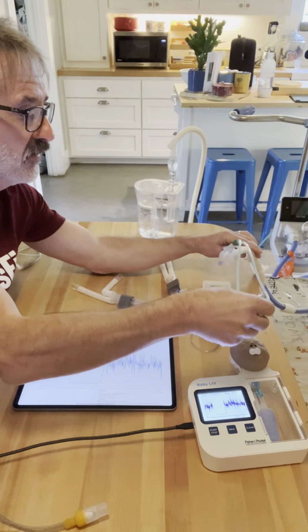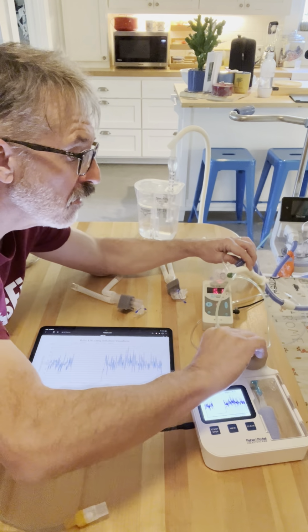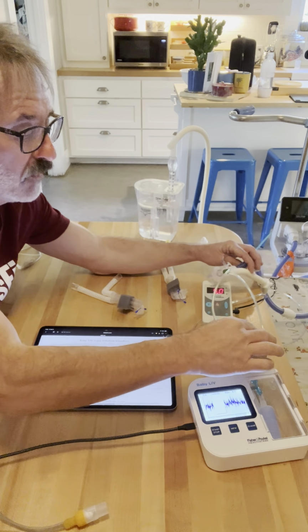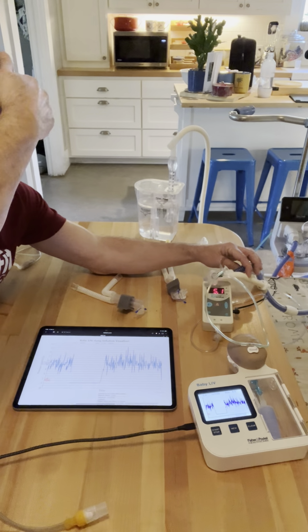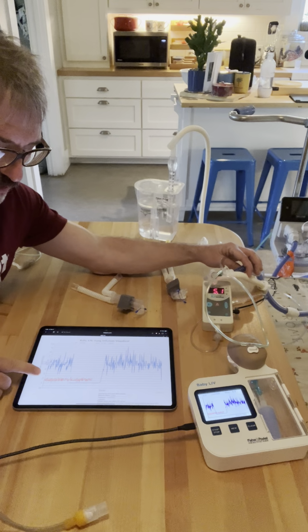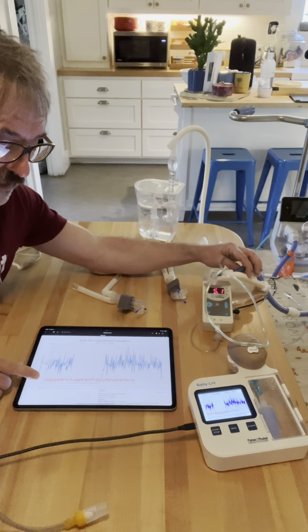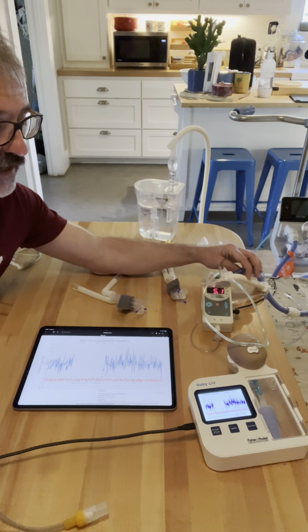So the question with this particular guy is how much pressure is the baby getting? We say 5.1 on my manometer, and we'll go new. It's going to come up in red, and it comes in at 2 centimeters of water pressure. So I've shown this in the past, about 60-80%, and we're seeing about a reduction of CPAP by about 60-80% as well. The vibrations have been virtually eliminated when you come in at that small of a cannula.